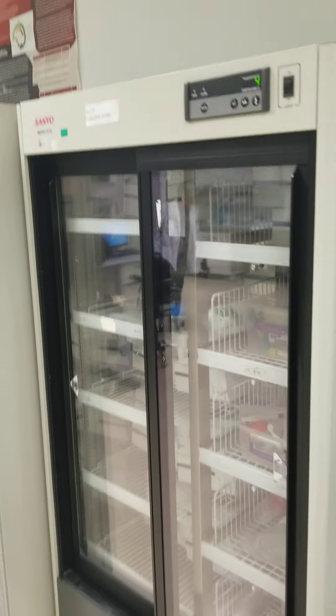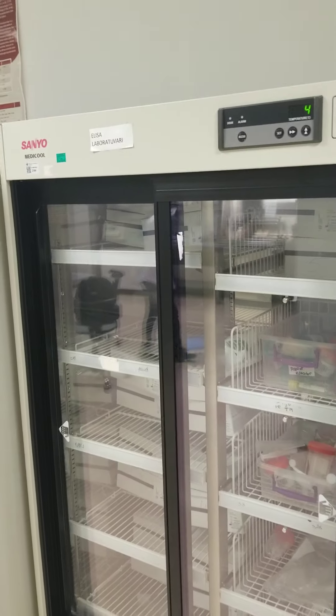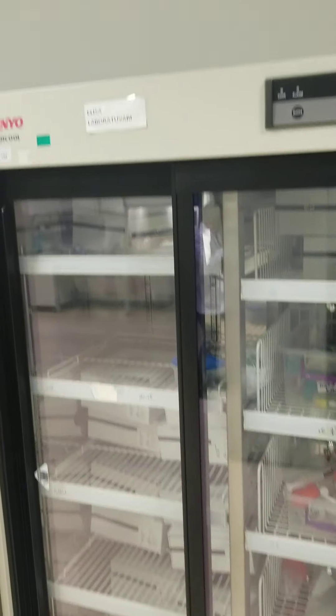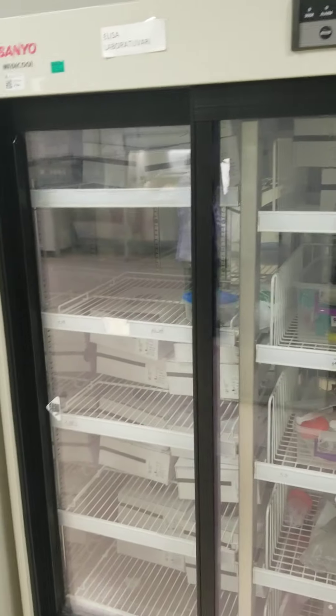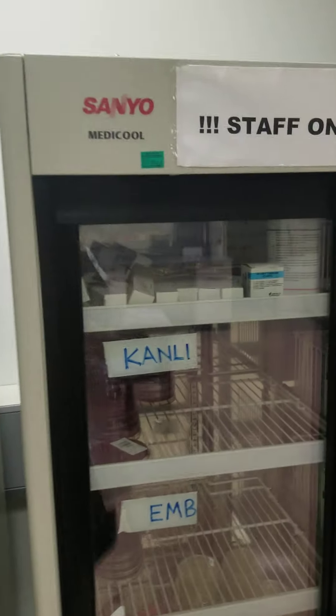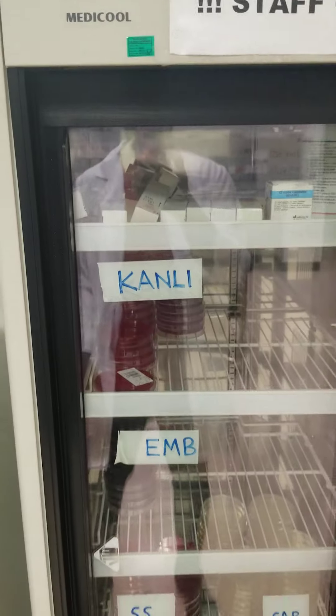We start with the first chamber — this is where all the ELISA kits are stored. The next chamber is where we have all the agar plates.